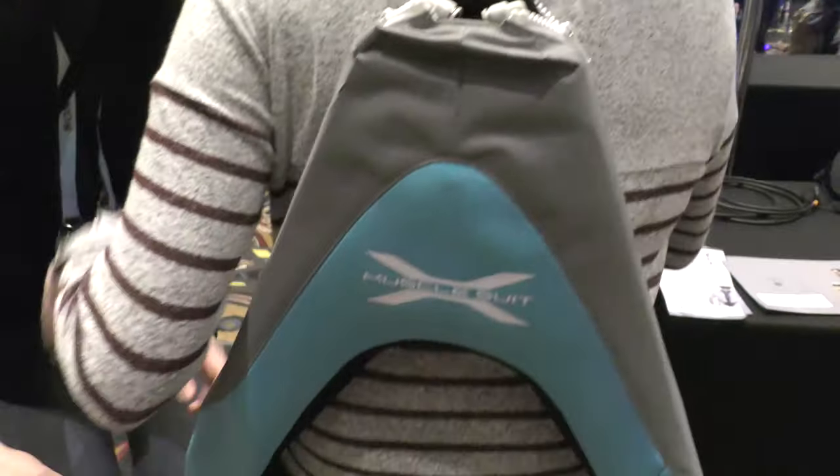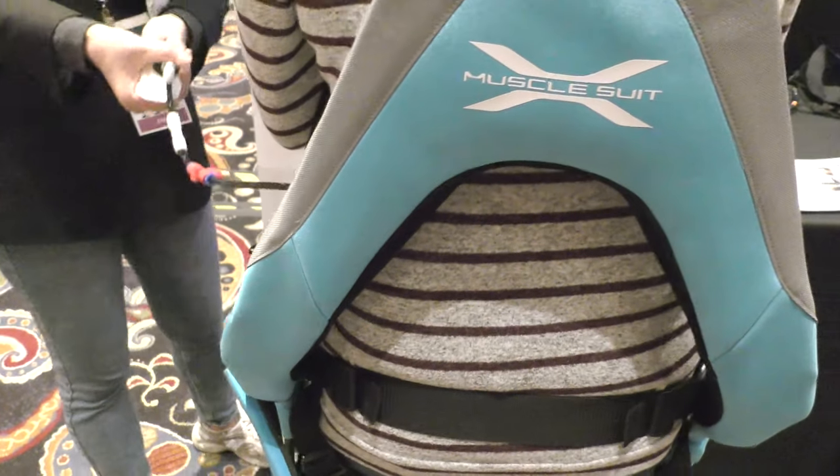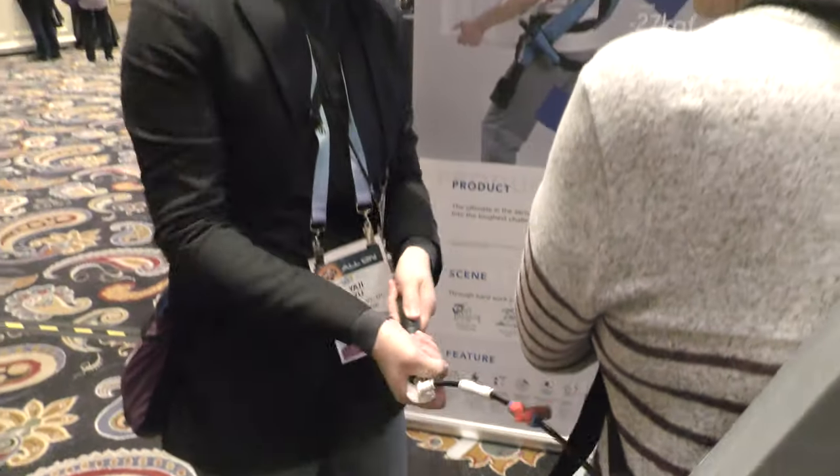So now she's going to pump me up. I'm facing backwards, and she's got just a small hand pump — looks like a bicycle pump. It is like a bicycle pump. She's pumping me up here, and I'm noticing it's getting tighter and tighter.